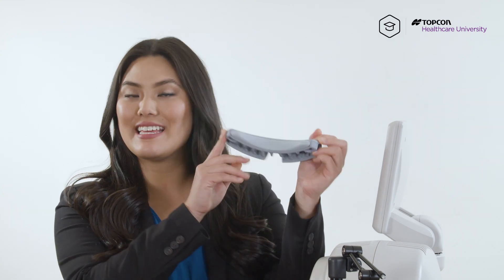The line anterior segment scan is useful for imaging anterior chamber angles of the left eye, the right eye, temporal angles, nasal angles, you name it. For the line anterior segment scan, we will need the Topcon forehead attachment rest.